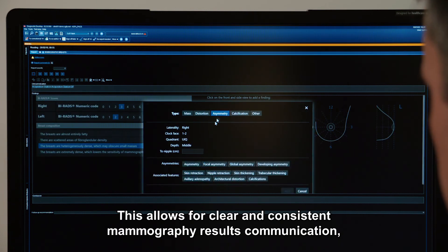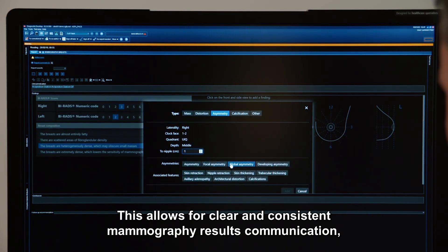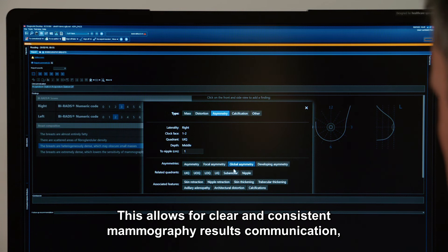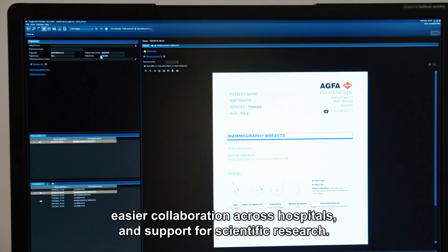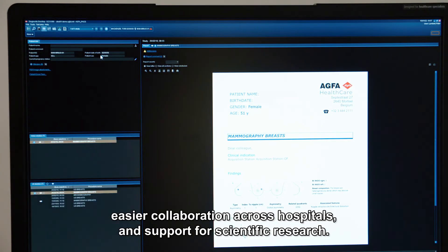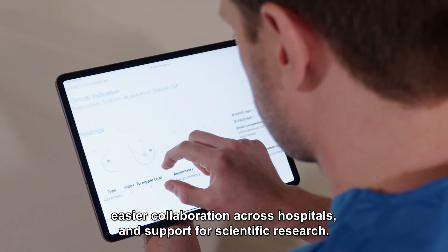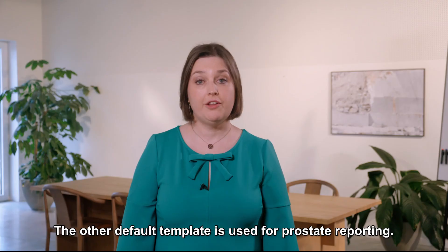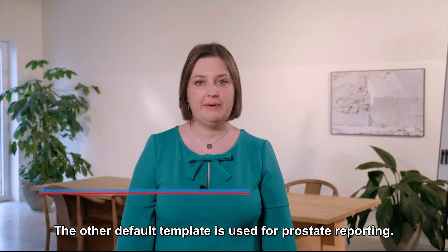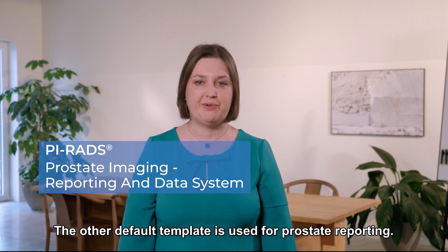This allows for clear and consistent mammography results communication, easier collaboration across hospitals, and support for scientific research. The other default template is used for prostate reporting.